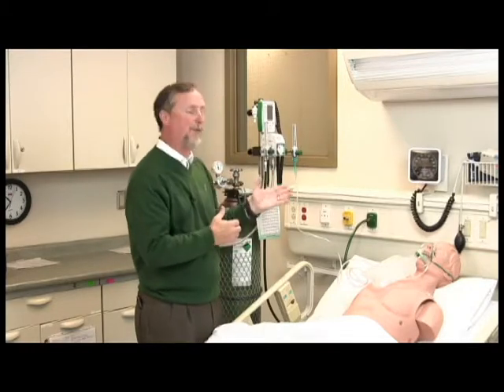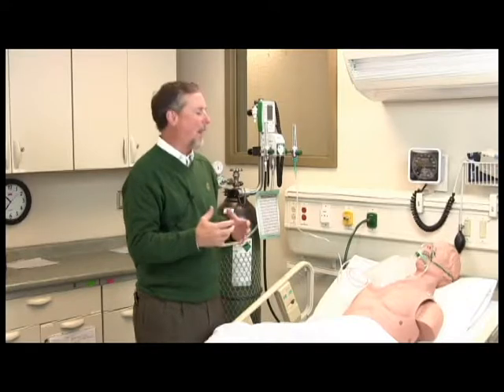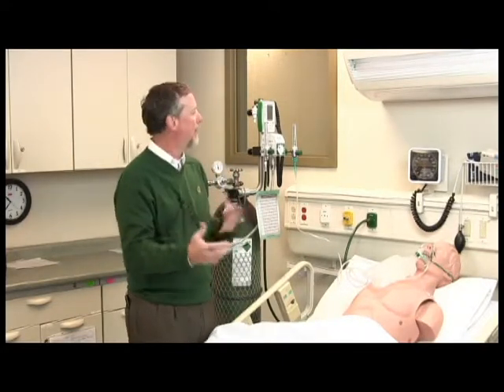We use oxygen flow meters. We don't have specific Heliox flow meters with this because at every different level of Heliox, you would come up with a different calculation of what the flow is, so it's a little bit hard to come up with a Thorpe tube style flow meter to cover all the concentrations of Heliox. That would really require some kind of electronic flow meter with feedback into the blender.